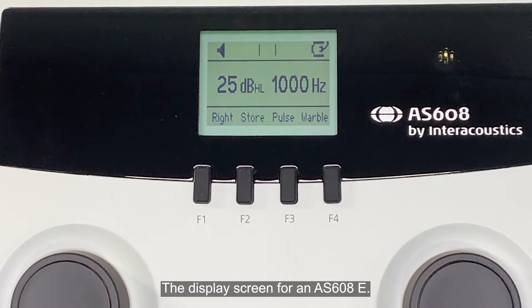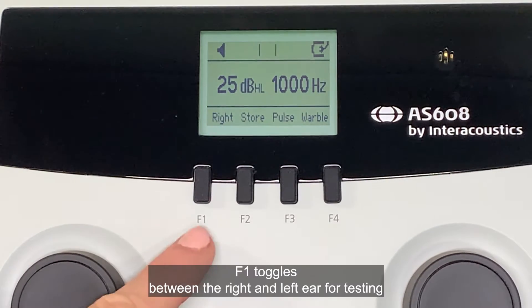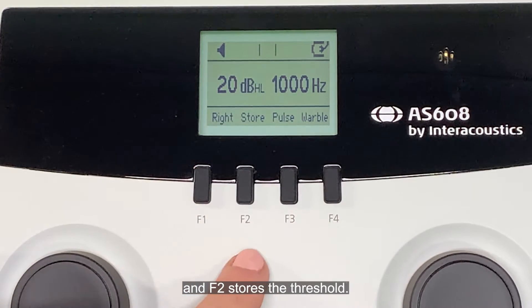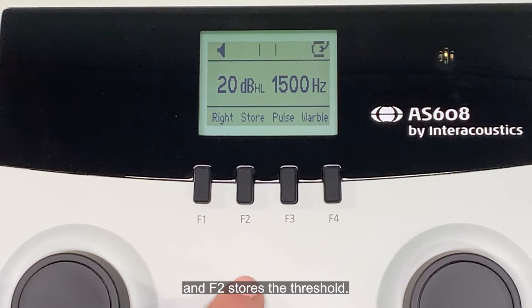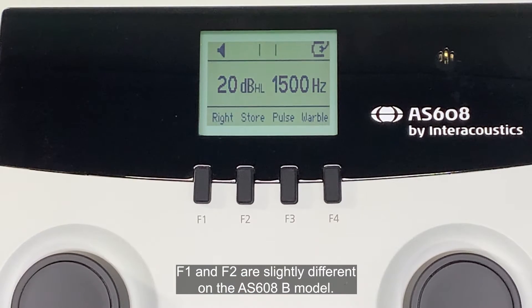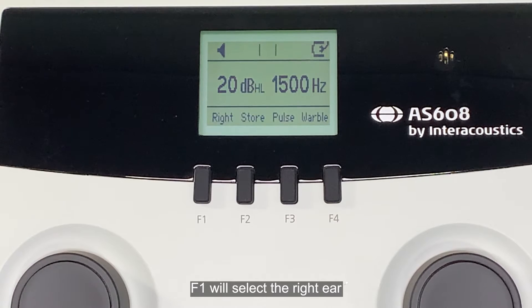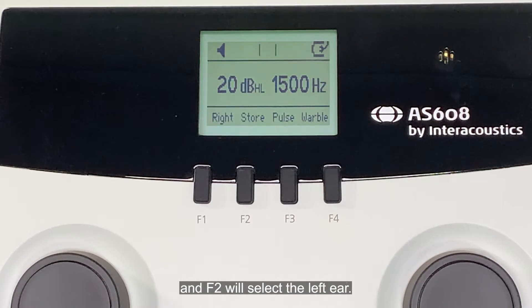The display screen for an AS608E. F1 toggles between the right and left ear for testing, and F2 stores the threshold. F1 and F2 are slightly different on the AS608B model: F1 will select the right ear and F2 will select the left ear.